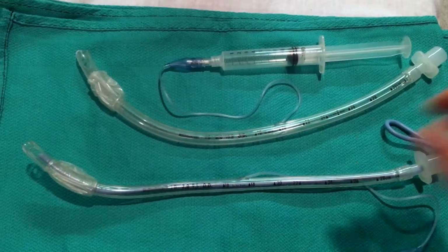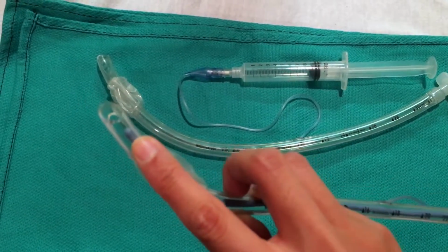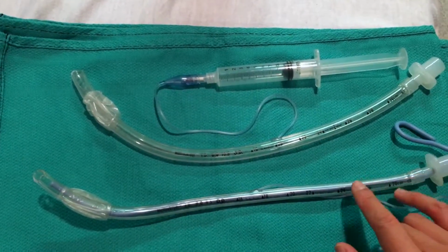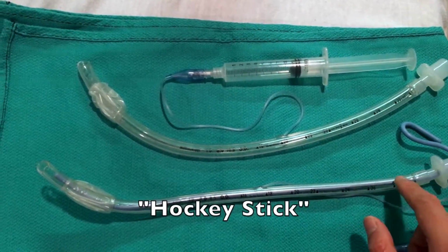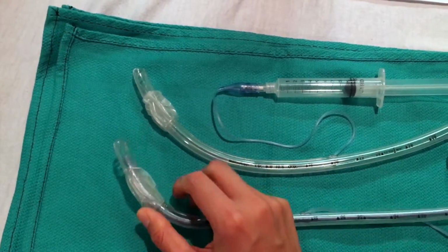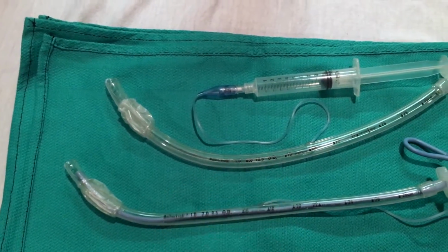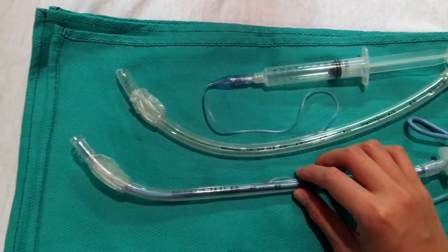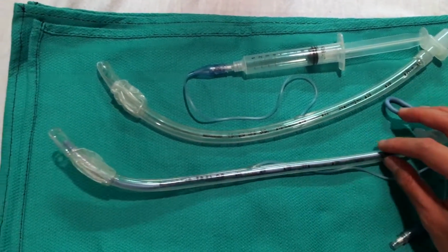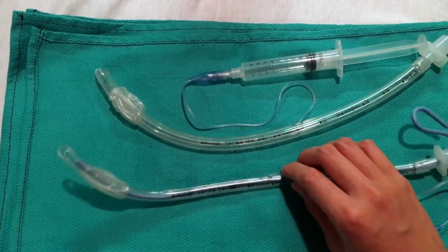So I just inserted the stylet into the size 7 ET tube. As you can see, it does not extend past the end of the ET tube or the Murphy's eye. I forgot to mention that when placing it, it should look like a hockey stick. It should go straight, then at the end, you can manipulate the stylet to curve it more or less. That allows for easier passage into the trachea, and hopefully helps to point it upward when you're intubating instead of going down into the esophagus. So those are some of the parts you would check on an ET tube, and also just the parts of the ET tube itself.